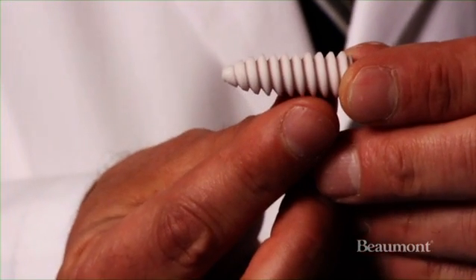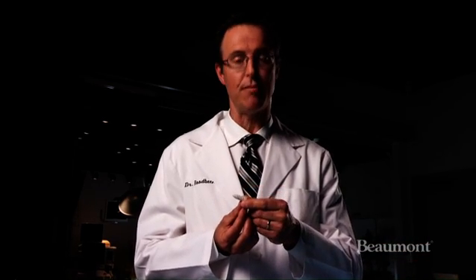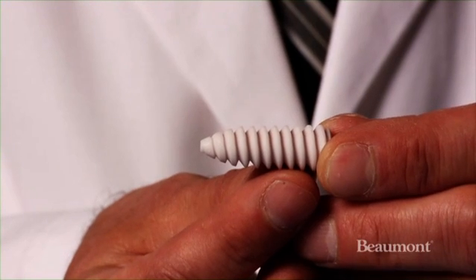Lastly, this is a larger screw to repair a ligament to the bone, such as an ACL reconstruction, where we put a graft in place and want to secure it to the bone — this screw could be used. Again, this is the same biocomposite material, which would then dissolve in a couple of years.